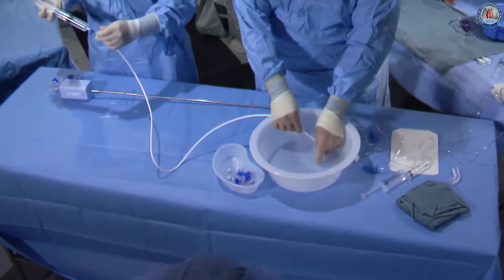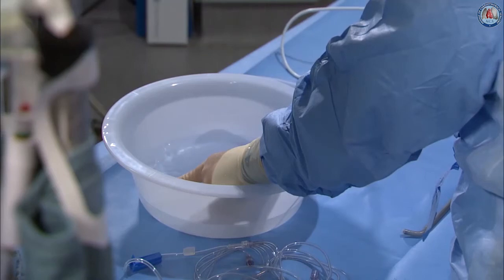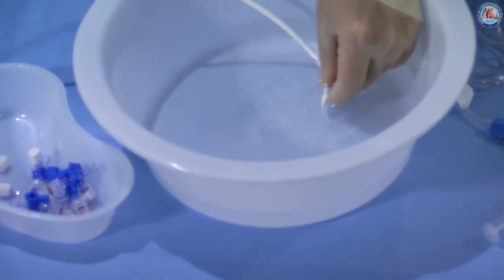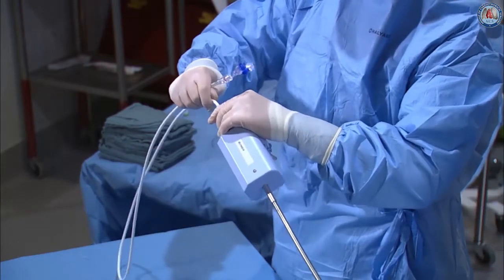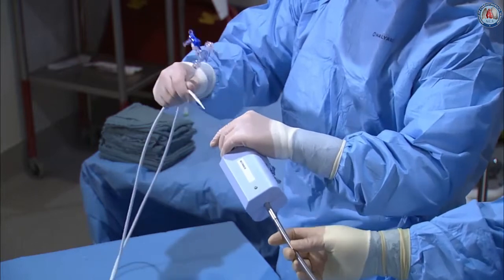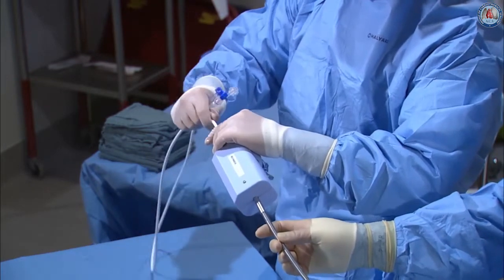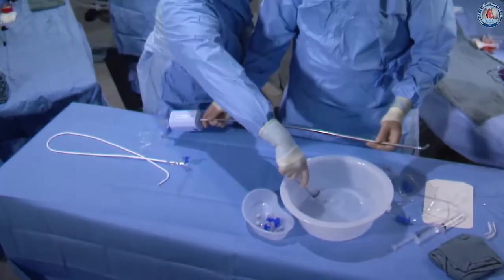He's going to put his finger over the tip underneath the water, and then hand the front end of the dilator to me. Here we're going to test the seal by advancing about 10 centimeters into the back of the guide. We do this twice to make sure that when this is a fluid-filled column it's going to hold and not entrain any air.